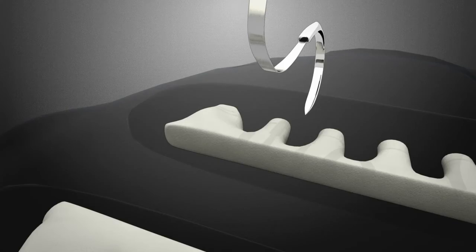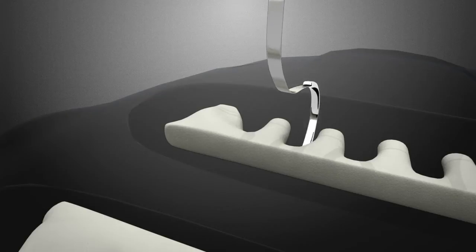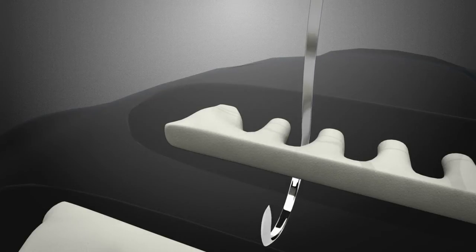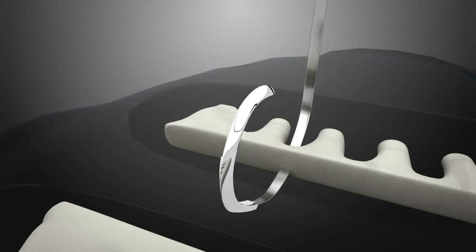A needle driver is placed on each needle prior to placement of the X device. Start with the cephalad needle and place it in a para or transsternal fashion through the far sternal half. Do not pull it through to the hub.